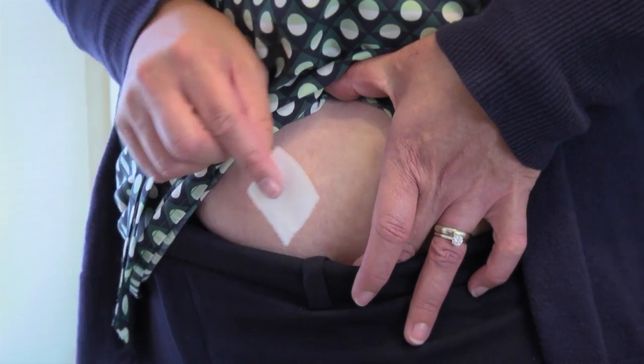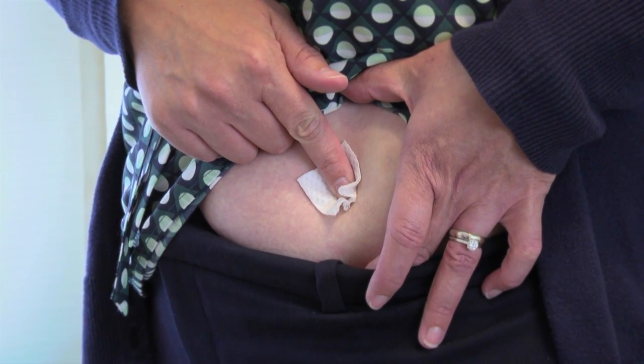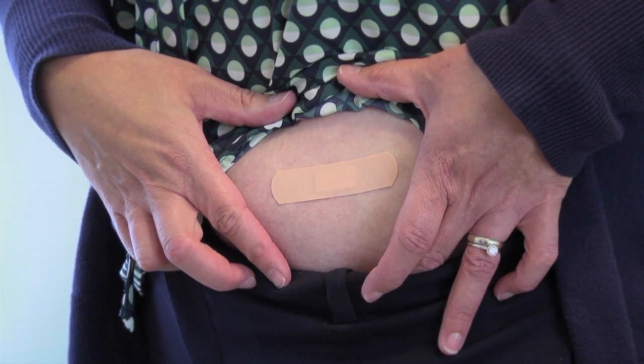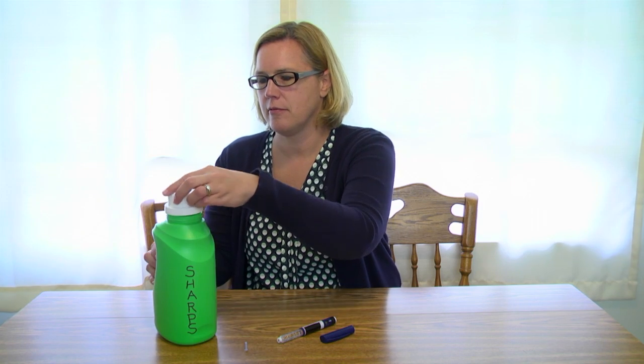You may bleed at the spot of the injection. If you notice bleeding, apply pressure with a clean alcohol wipe or cotton ball. Cover the injection site with a bandage if necessary. Carefully place the outer cap on the needle and unscrew the needle — it should come off with the outer cap. Drop it into your container for used sharps equipment. Replace the pen cap and store at room temperature.